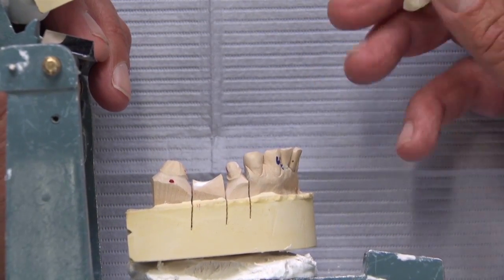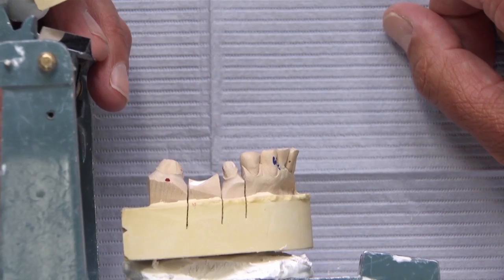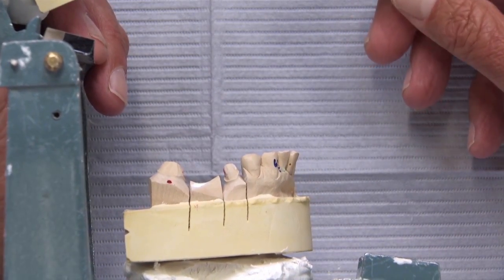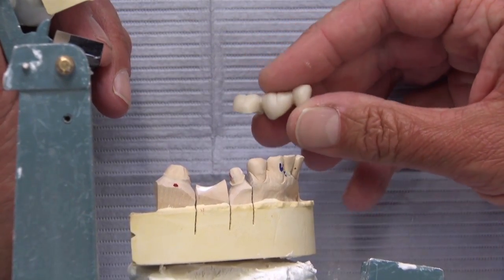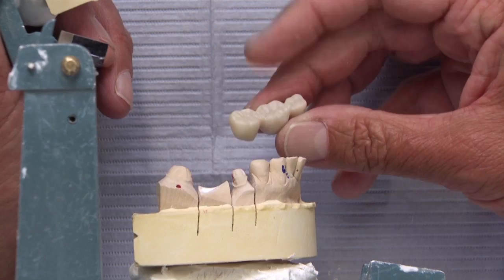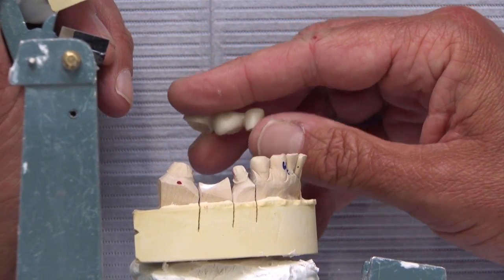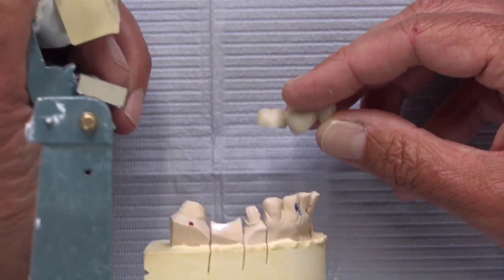The bridge can be fabricated but if you take out both teeth it fits individually — it won't fit simultaneously. So we'll send a bridge that's been adjusted on the inside along with reduction copings, especially on the bicuspid, so the doctor can straighten up that wall and tilt it back toward the mesial. If it doesn't fit, he can take a new impression and we can make a bridge that fits. At least the doctor gets to try it in the patient's mouth and make a good-faith effort.